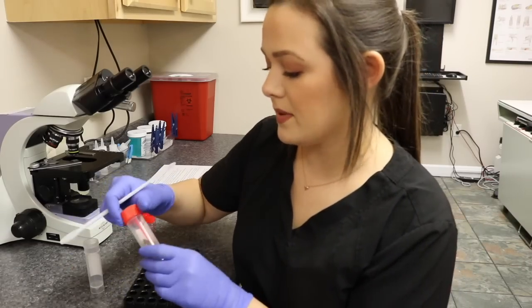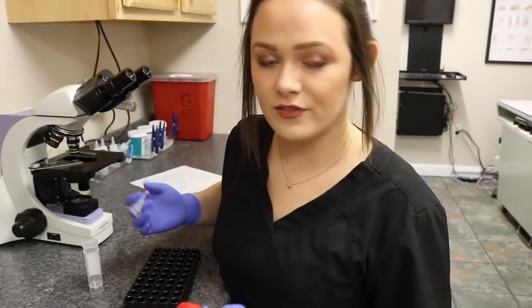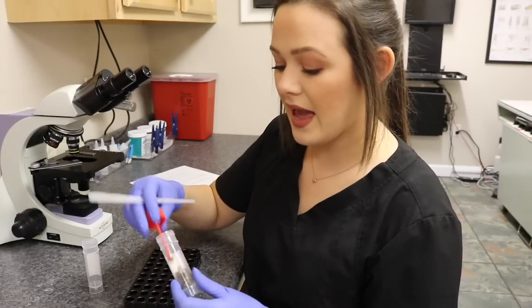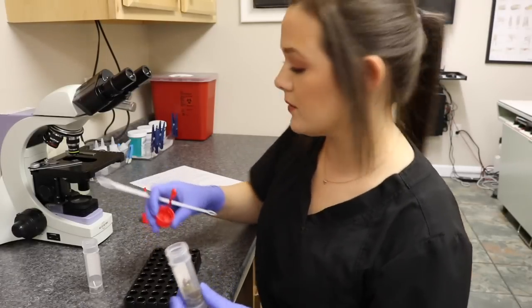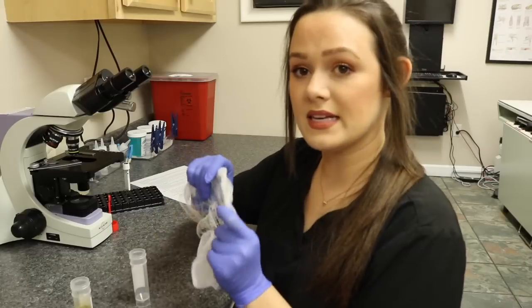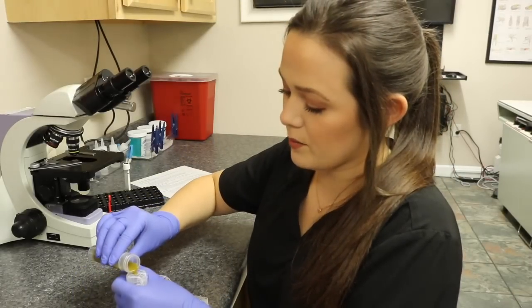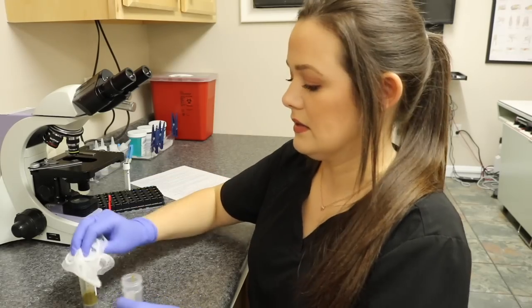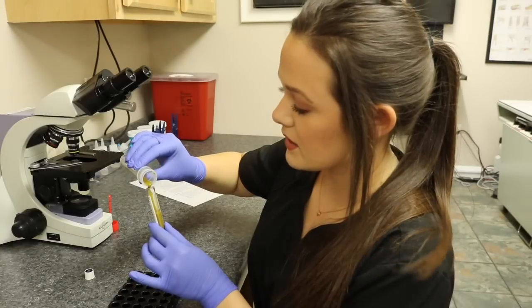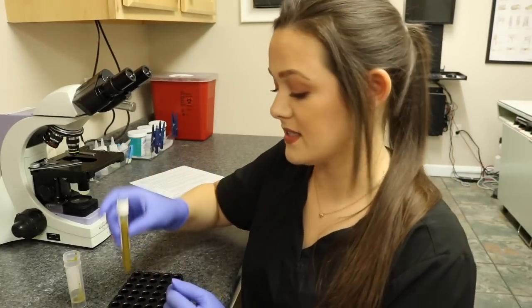Finally, I'm going to demonstrate how to do sedimentation. This is done usually on large animal parasites because the eggs of those parasites are too heavy to float. I have my 2 gram sample and I'm just going to add some water to it. Once my container is filled with water I'll mix the sample, take some gauze over a clean container and strain the sample through, discard the solids, then pour the strained sample into another container, fill it leaving just a little bit at the top, put the top on, and centrifuge the sample.